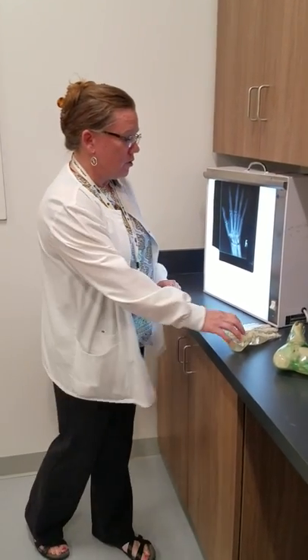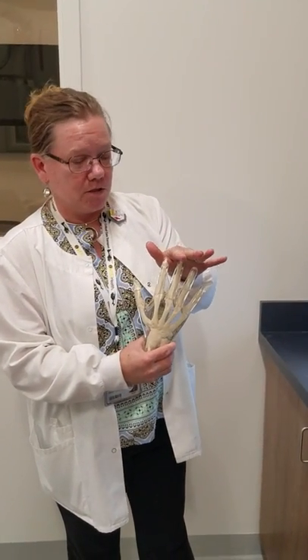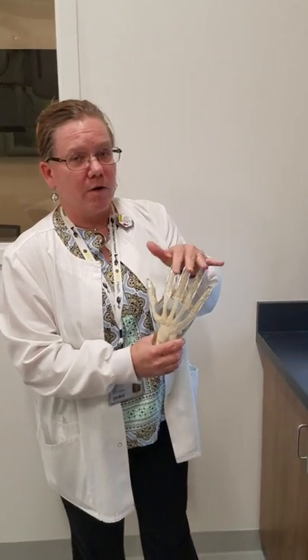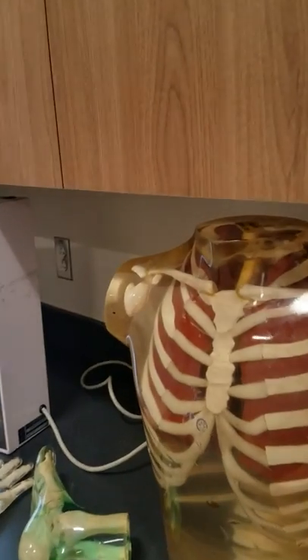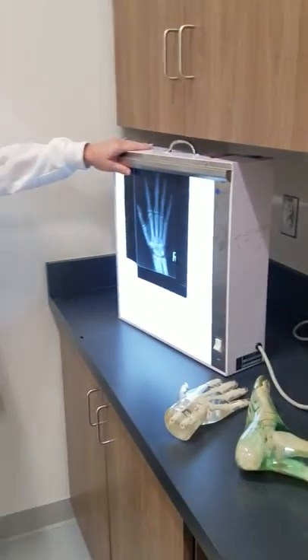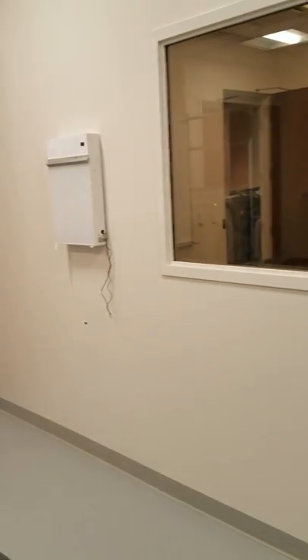We also use phantoms — these are called phantoms — which we use in teaching so our students don't x-ray each other. Students x-ray the phantoms to get a feel for what a proper image should look like. This is called a view box, and images are viewed on the view box. We use it to evaluate our image and determine if we need any additional images.